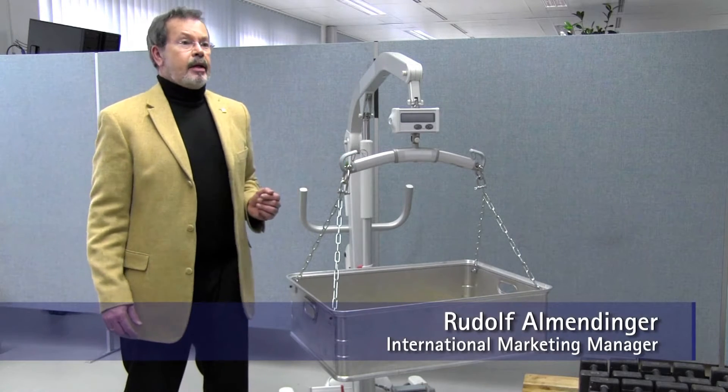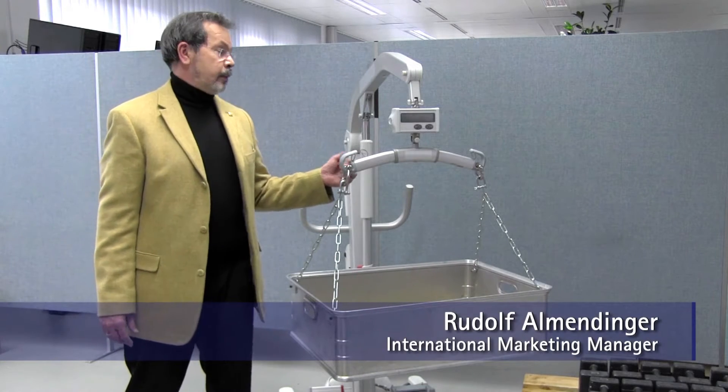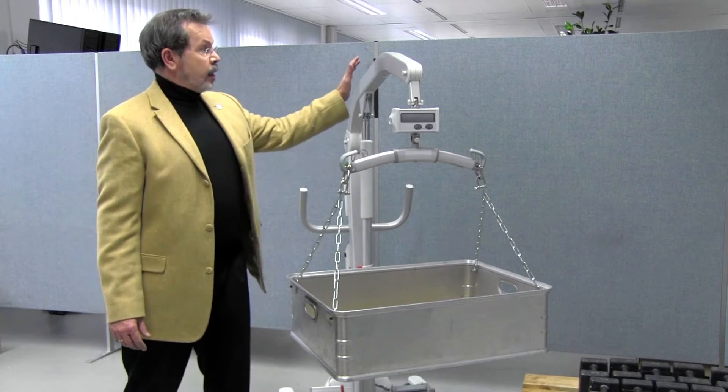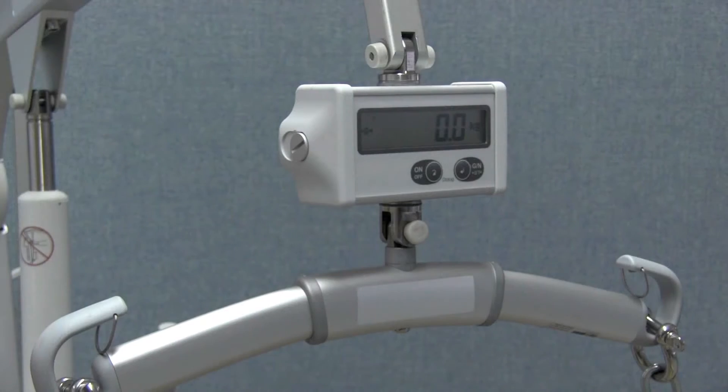I would like to show you in this video how easy it is to calibrate an HBM sling scale, the SLS, in a lifter. Here you see the lifter and sling scale already assembled.